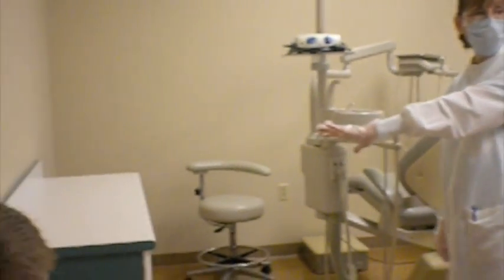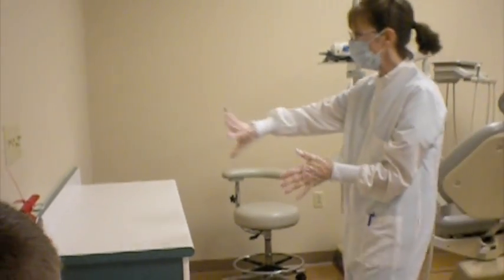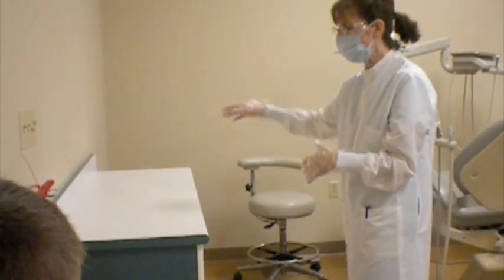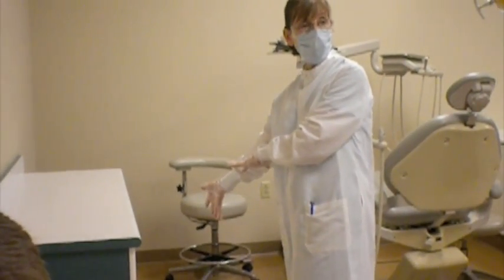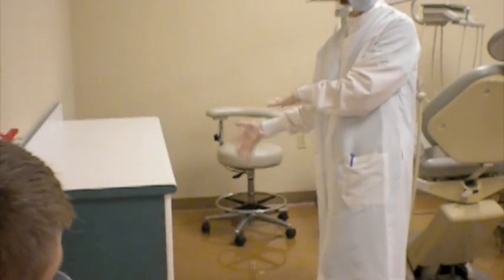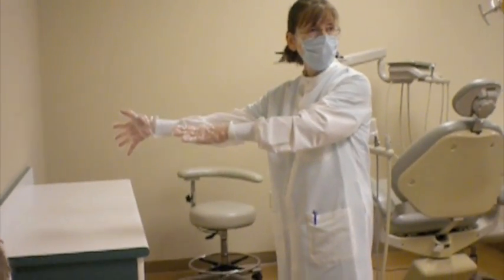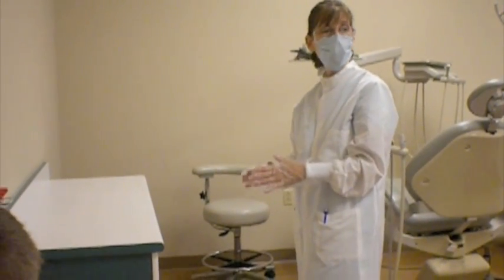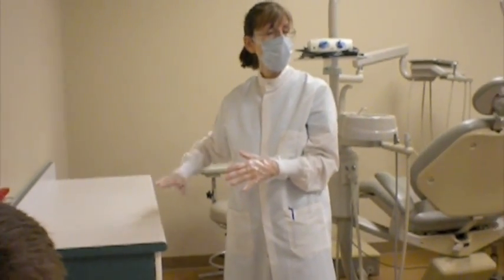And you also, on the end units, have an additional full cabinet. So you would be washing the backsplash, the tops, the sides, the front, and all the interior drawers. At another unit where you might have another operator to your opposite side, that person would be responsible, typically if they're there, for their countertop.